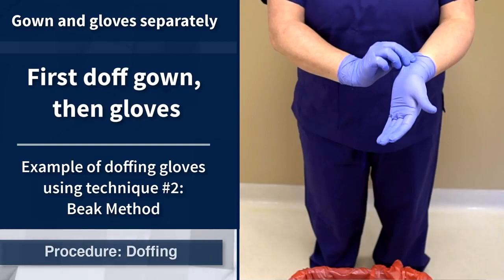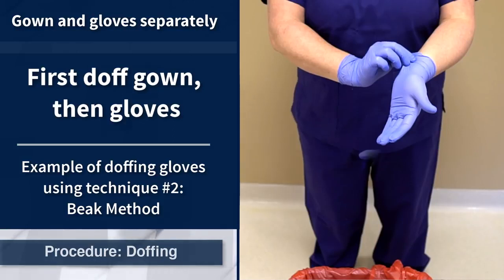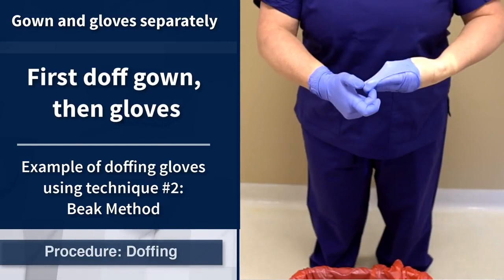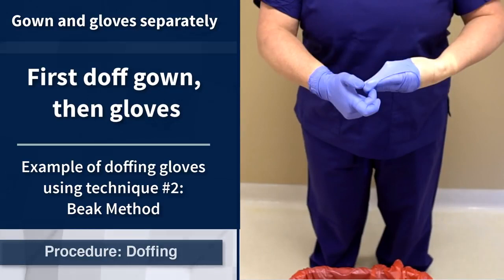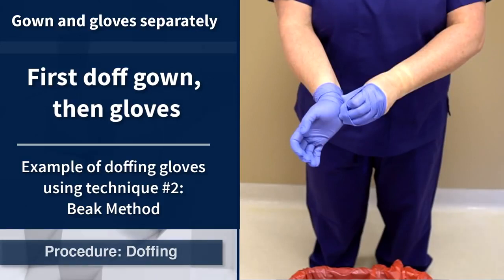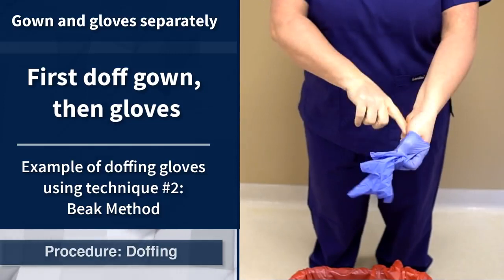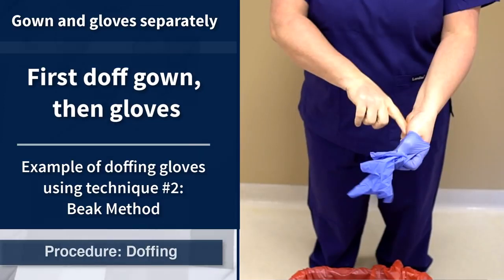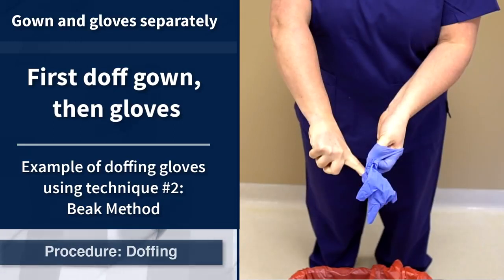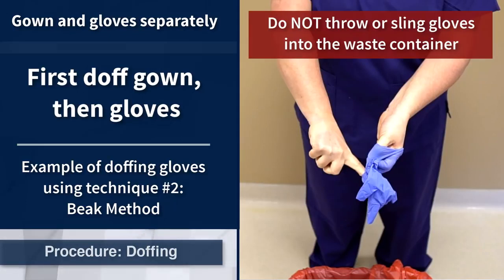Another method of glove removal is the beak method. Begin by pinching and pulling the wrist of one glove with a gloved hand. Then, using a middle finger, scoop the cuff to pull the glove inside out and over the fingers and thumb to create a beak. Use the beaked hand to pinch the wrist of the other glove, pull it down and off. Slide the index finger of the ungloved hand into the inside of the glove and slide it off. After the gloves are removed, dispose of them safely. Do not throw or sling gloves into the trash.